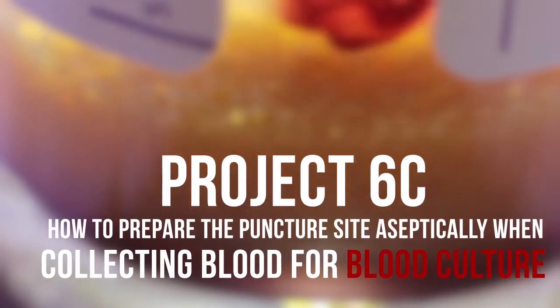Project 6C: How to prepare the puncture site aseptically when collecting blood for blood culture.